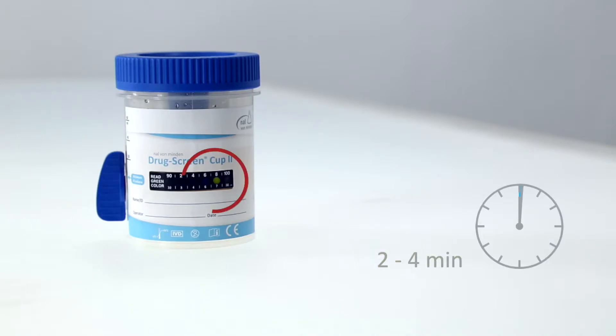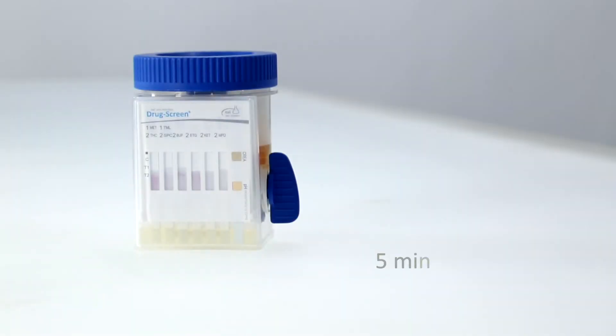Check the temperature, marked in green, after 2 to 4 minutes. Read the results after 5 minutes.